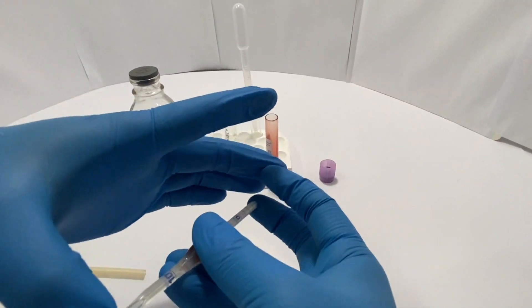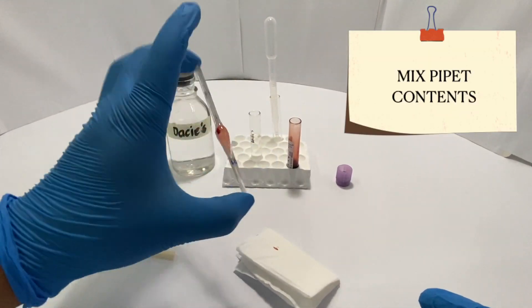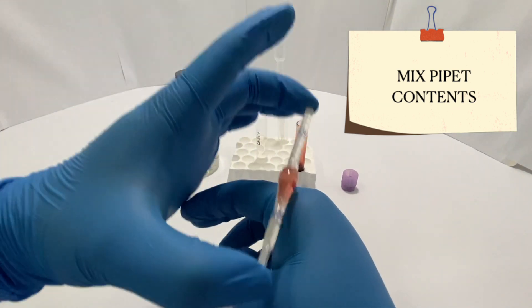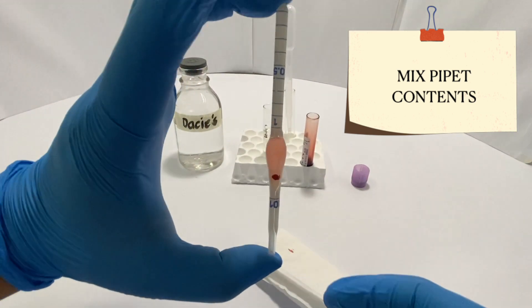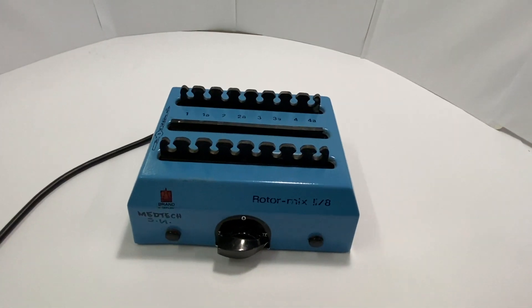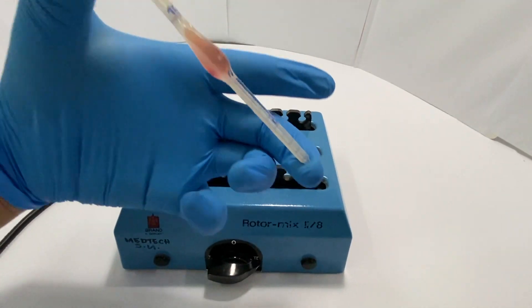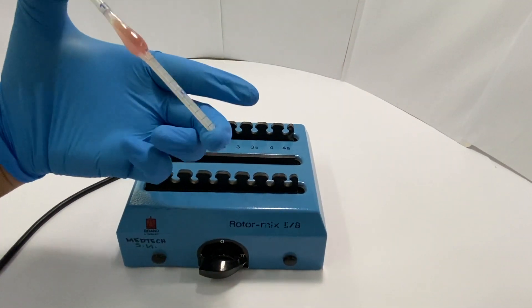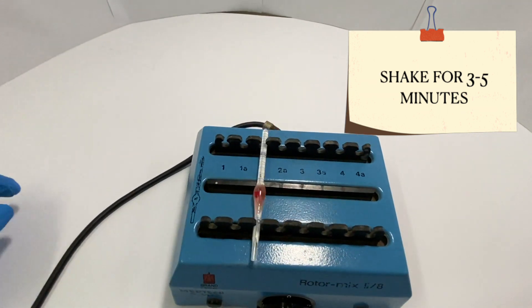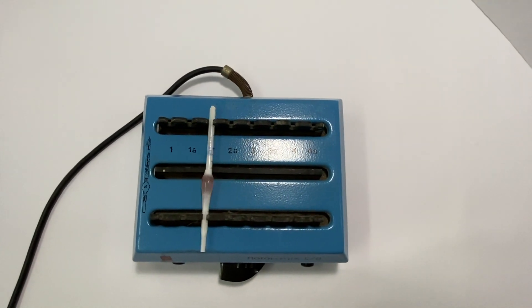Cover the tip of the pipette with a gloved finger and with the other hand slowly remove the rubber tubing. Cover both ends of the pipette with your thumb and finger and mix by inverting. You can also gently tap the pipette on your hand to release any blood that may have attached to the glass walls. The last step is to mix the pipette contents in a mechanical shaker. Make sure to follow the position of the pipette indicated on the machine diagram. Allow mixing for at least three to five minutes before proceeding to the next step.